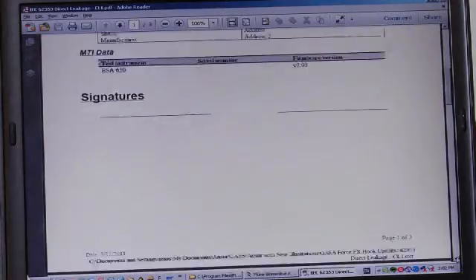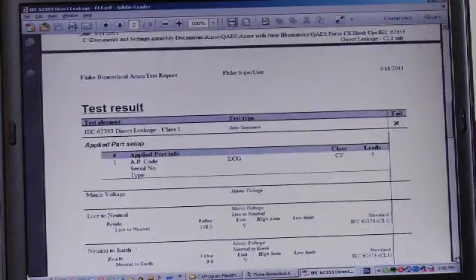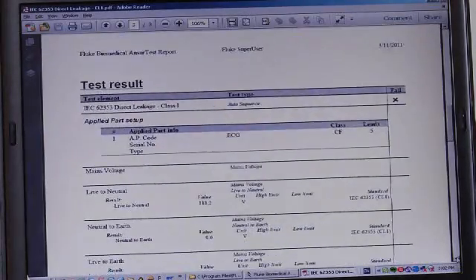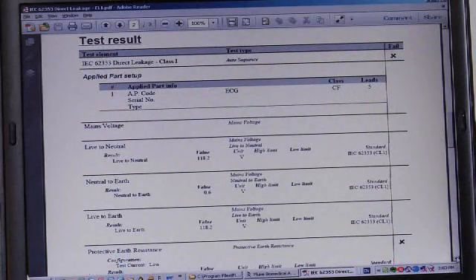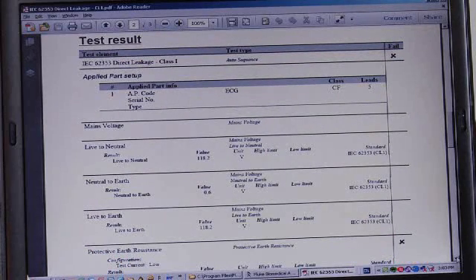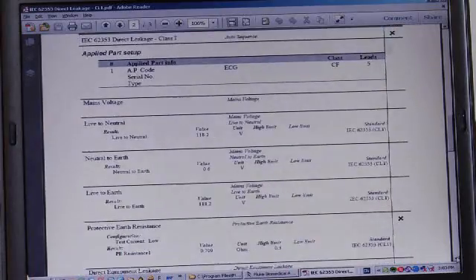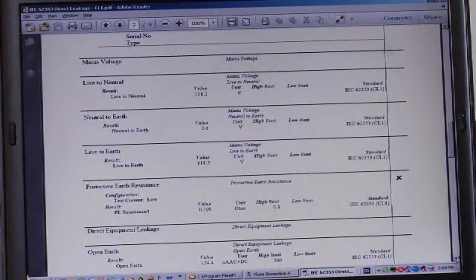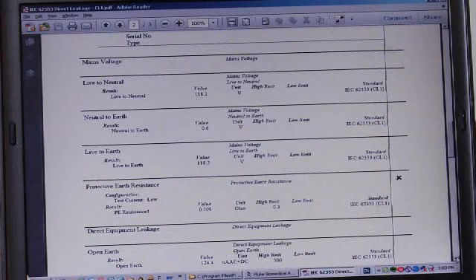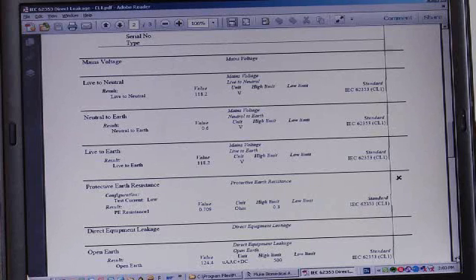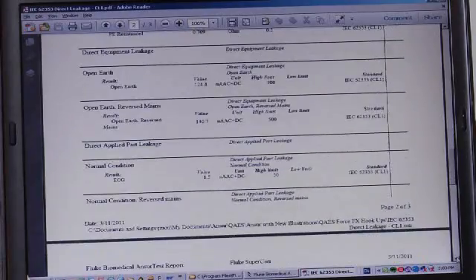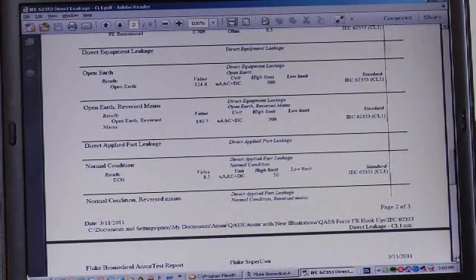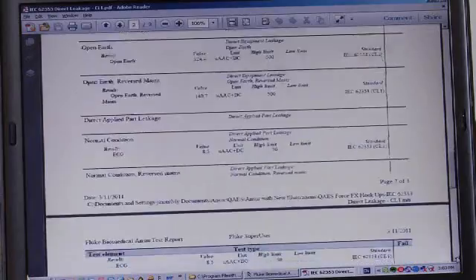We'll now scroll down to the next page in the test record. In this case, you can see each of the tests that were done, voltage tests, followed by our protective earth test. And you can see that in the far right-hand column, there's an X indicating that the protective earth test or ground resistance test is what was failed in this particular test result file. All of the test measured values show their testing limits and the test that was done to document the measured value.